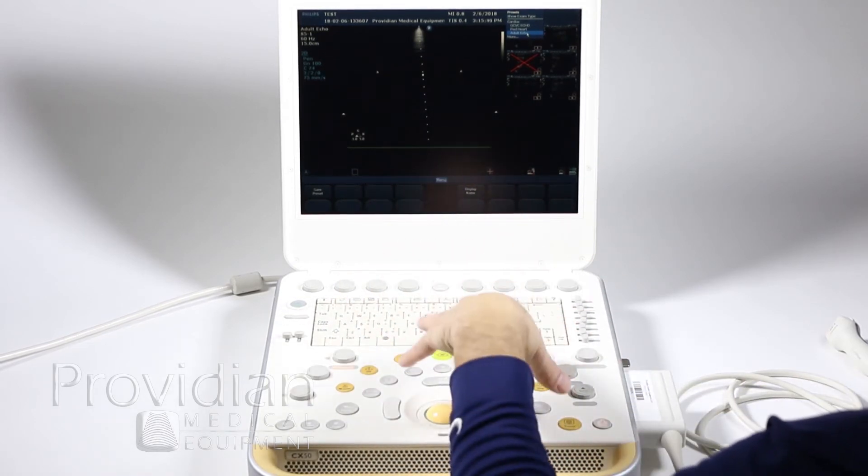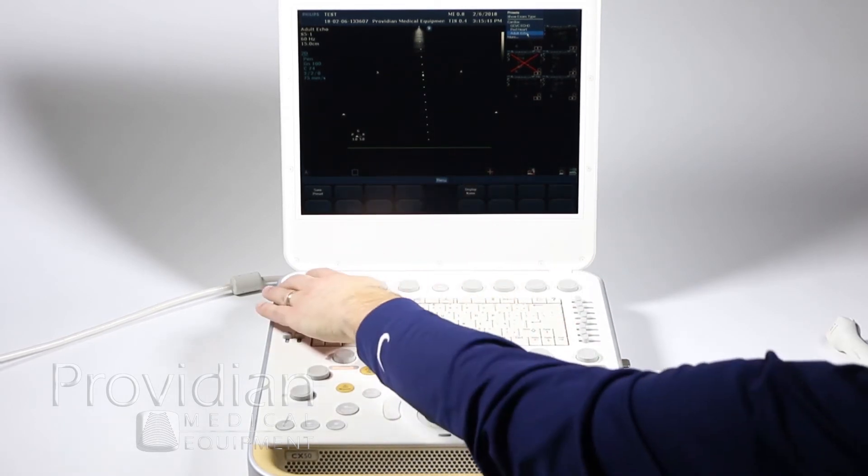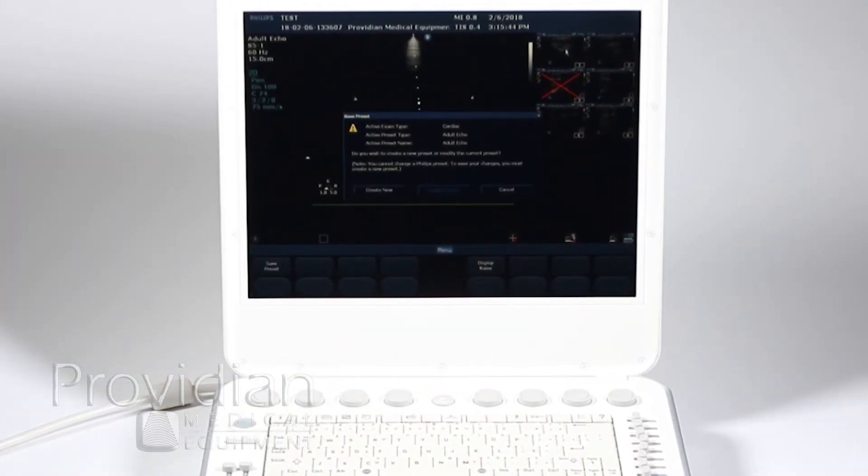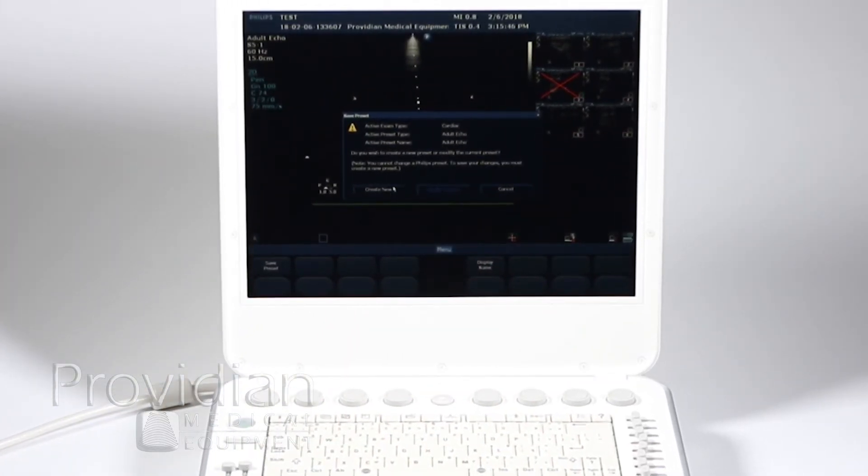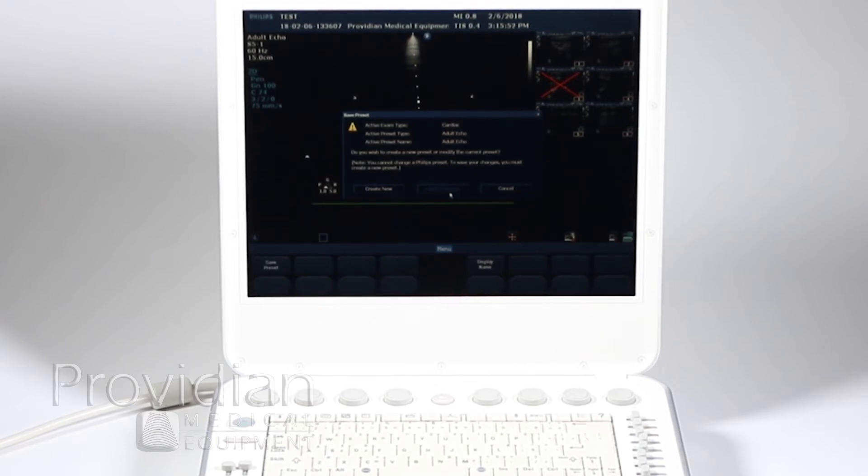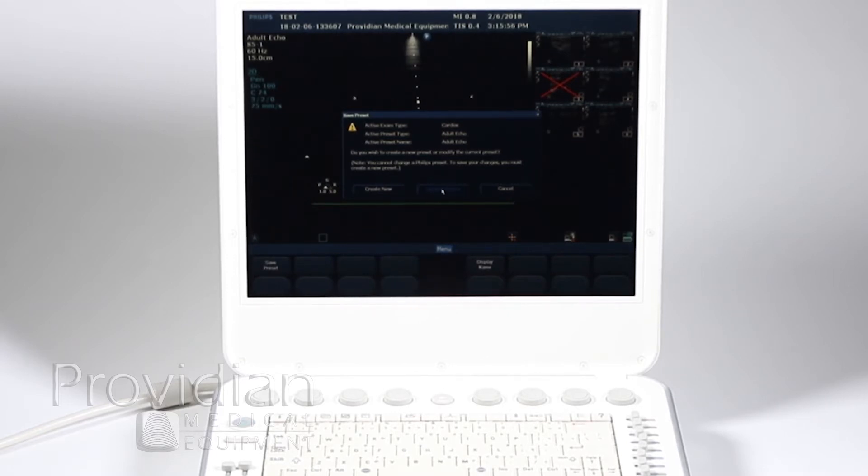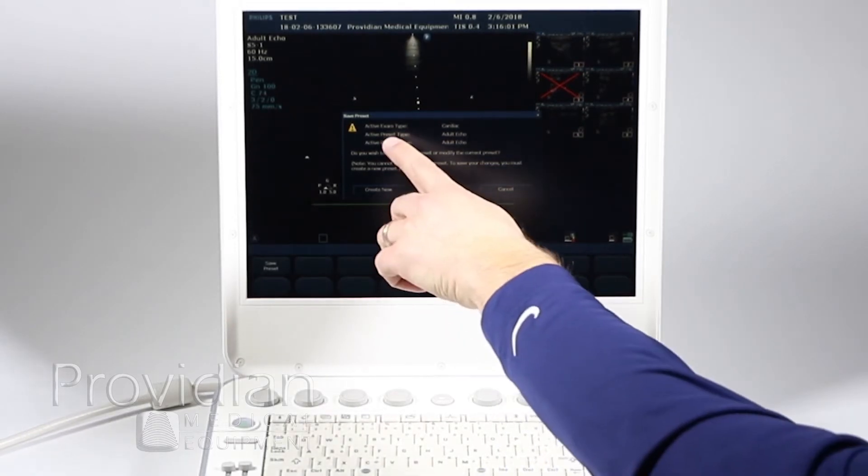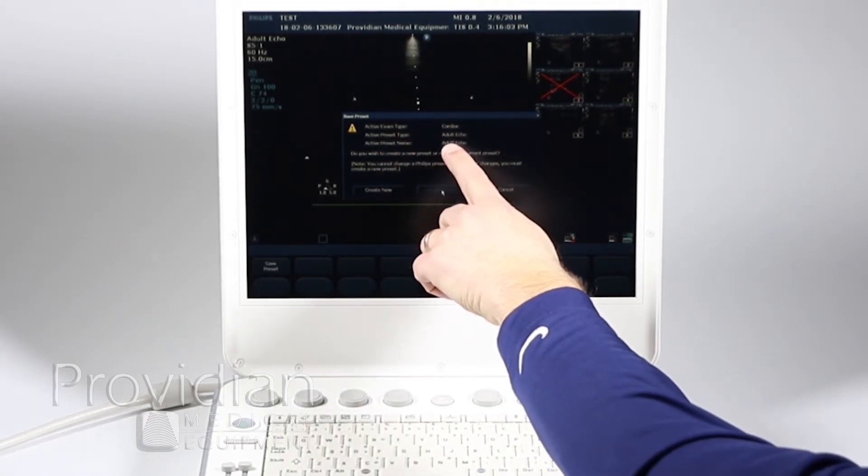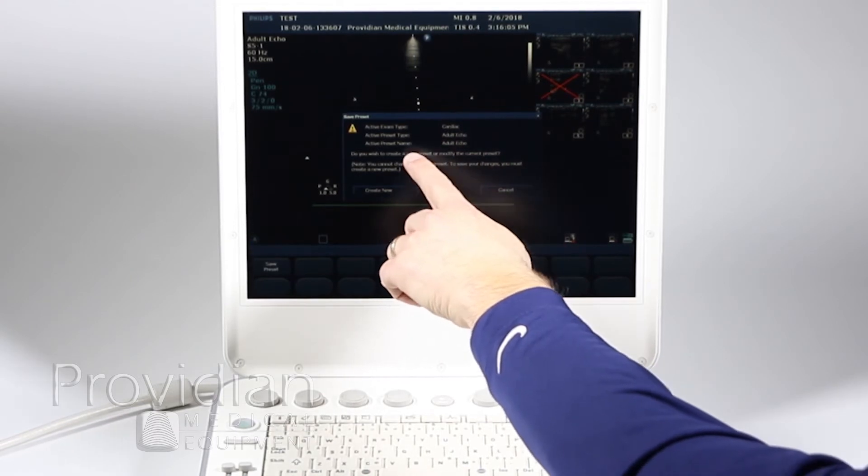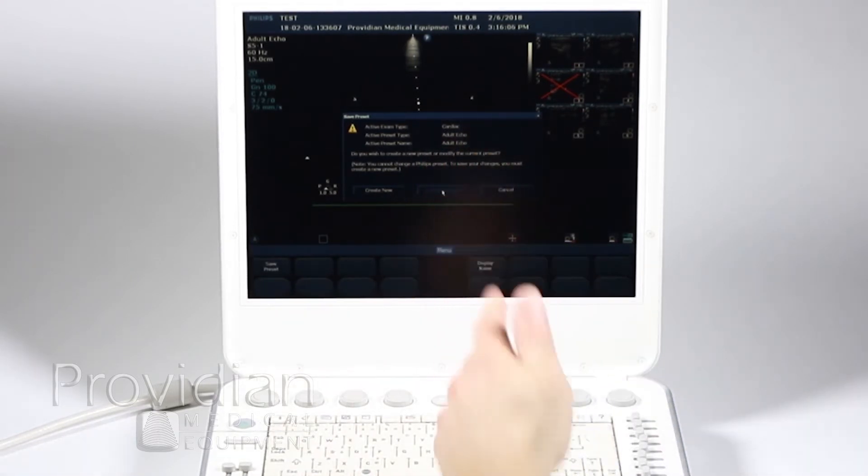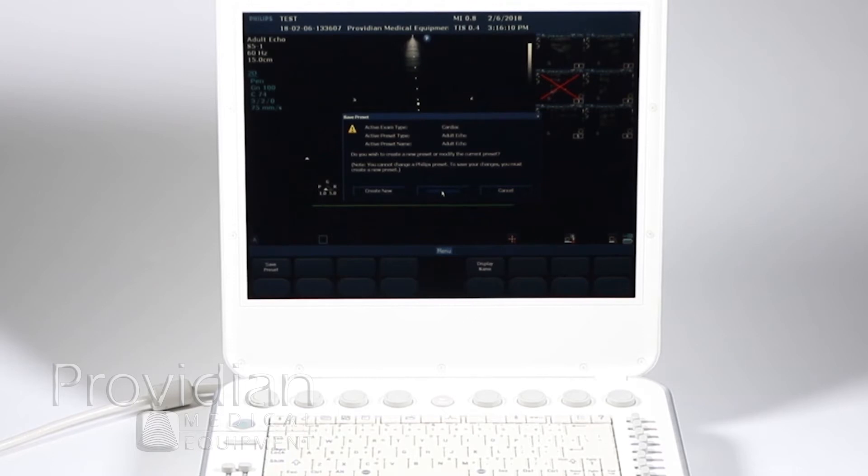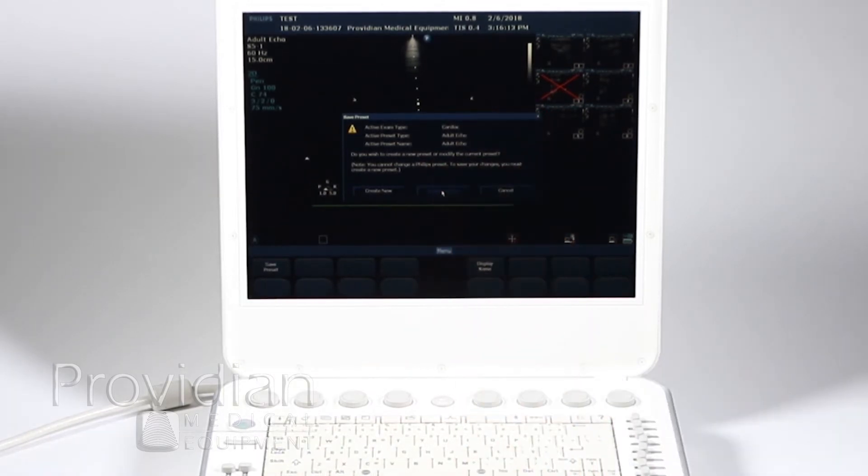It's going to remember all the changes I just made and then I'm going to click save preset and it's saying do you want to modify the current or create new. This is a factory preset that I've chosen. So this modify current is not highlighted. It's grayed out so I can't click on it, meaning I can't override the default preset on the system.